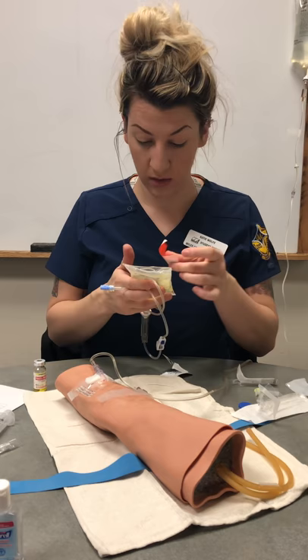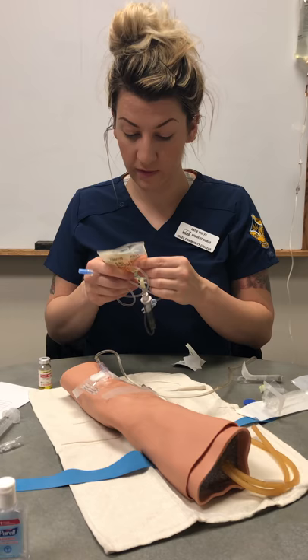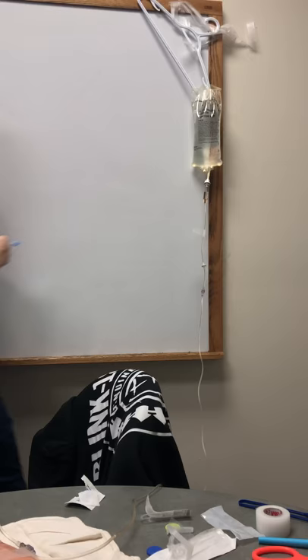We would want to put a label on the back side so you can see the medication on the front — with the patient's name, the drug, the amount, who put this together, the date, the start time, the expiration time, and what the base solution is, which you can obviously see on the front.